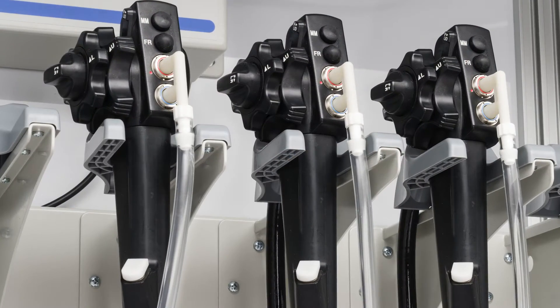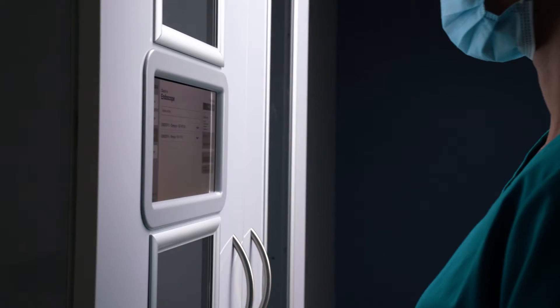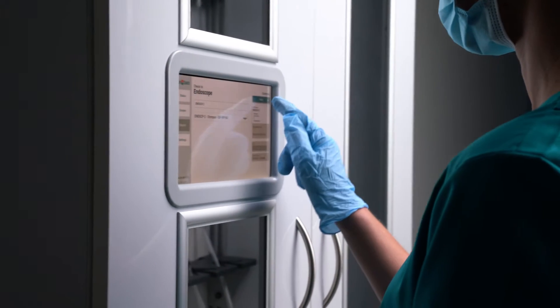The Ventair system works with all major endoscope brands. Operate and monitor your scope drying and tracking system from the 10-inch touchscreen on the cabinet.